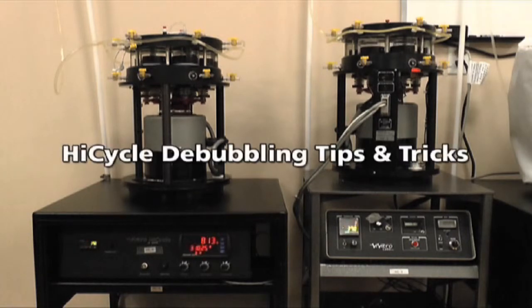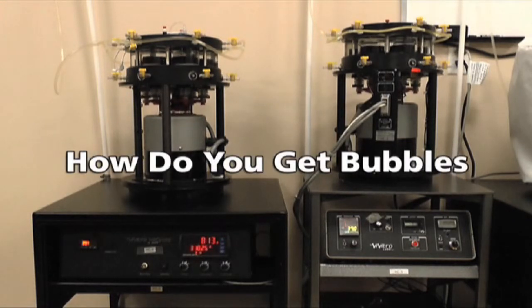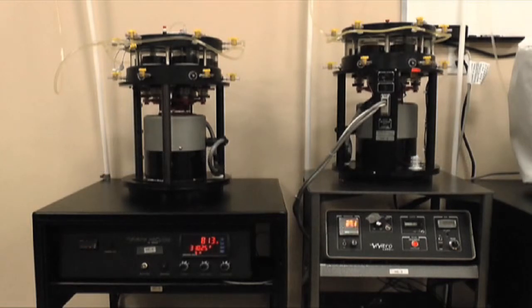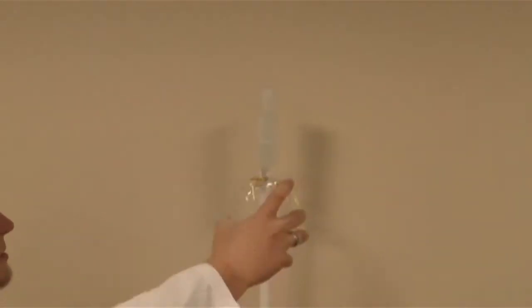This video will address how air gets into the HiCycle chambers, how to prevent this through regular equipment maintenance, and how to remove air bubbles when they do form. Air bubbles can enter the system at any seal or interface between the test fluid and atmosphere. You may have a static head feeding fluid into the system. If this runs dry, air will get sucked in.